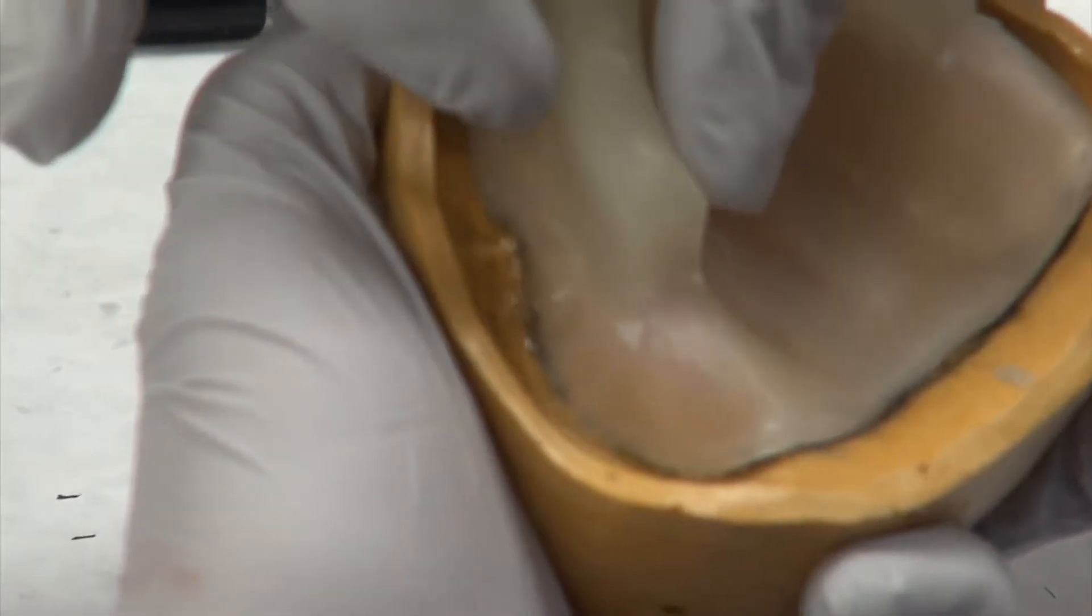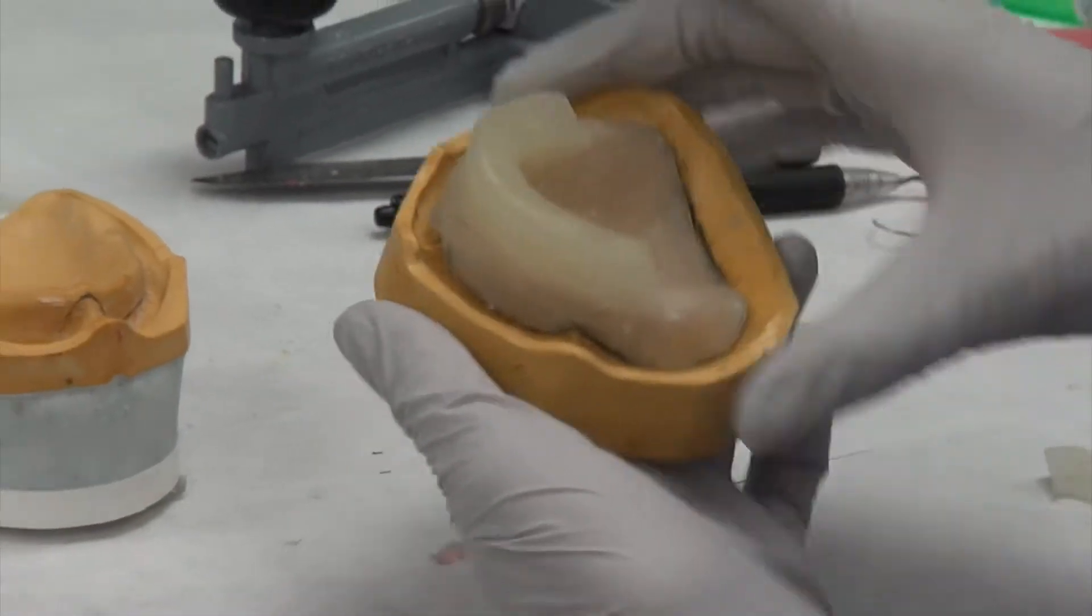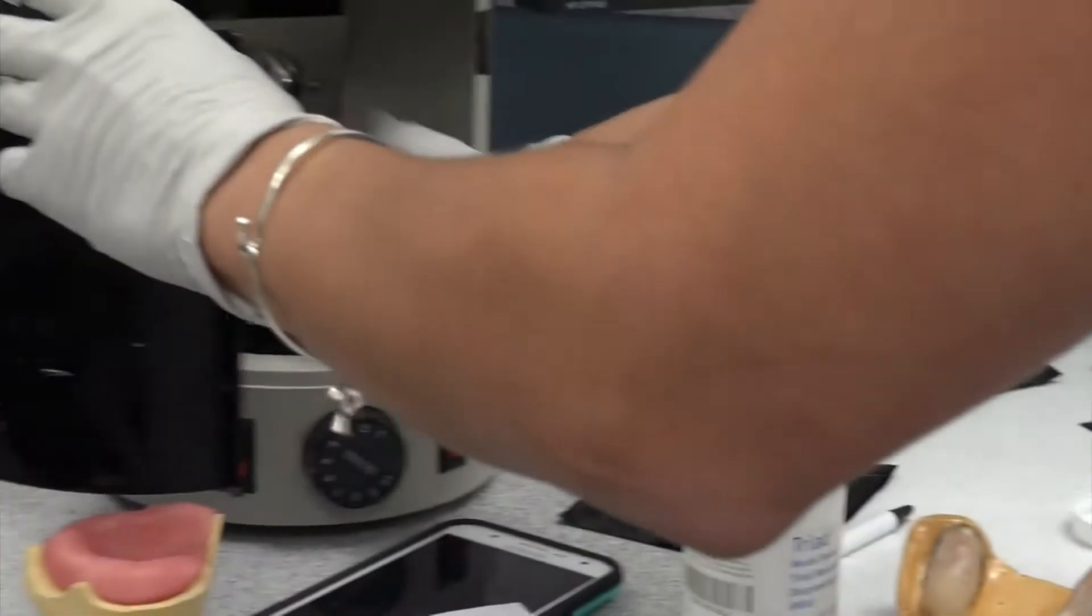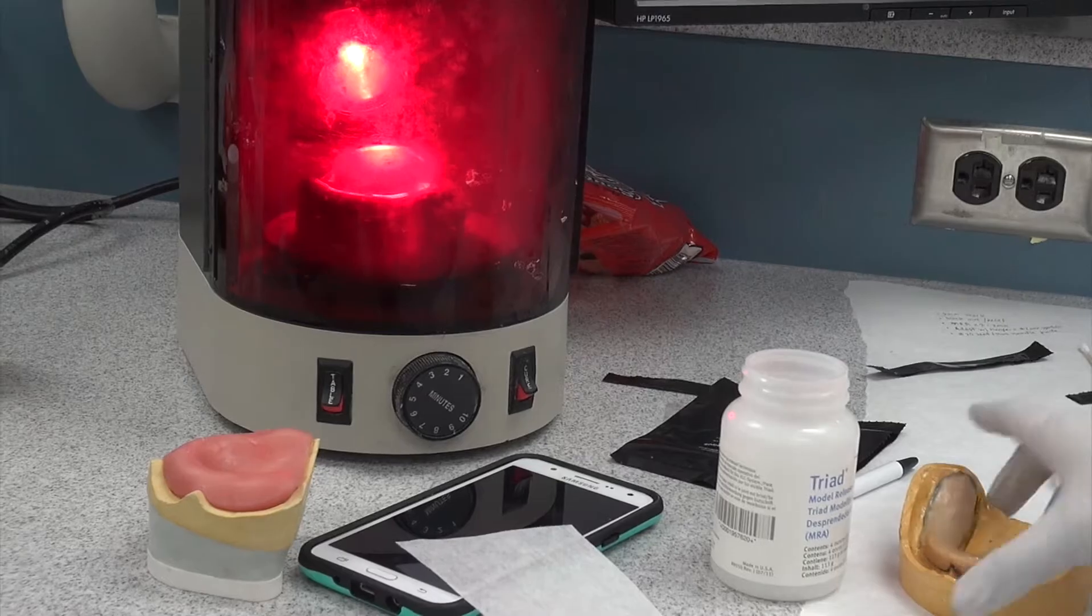And if you're ever so slightly short, you can correct that once it's hard.